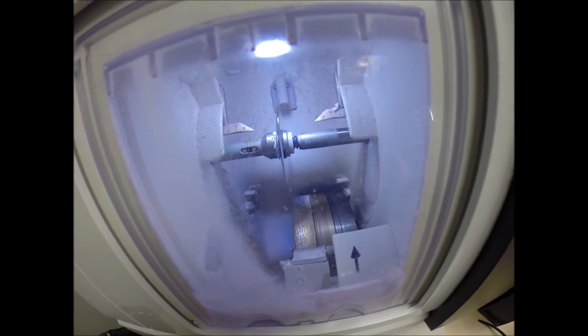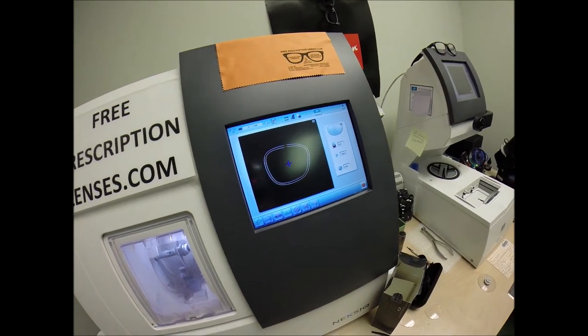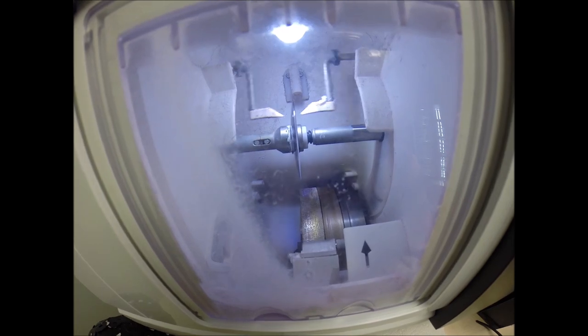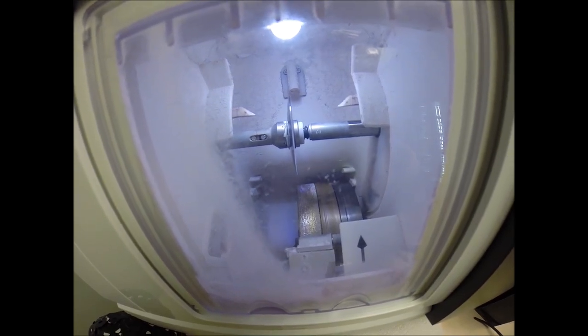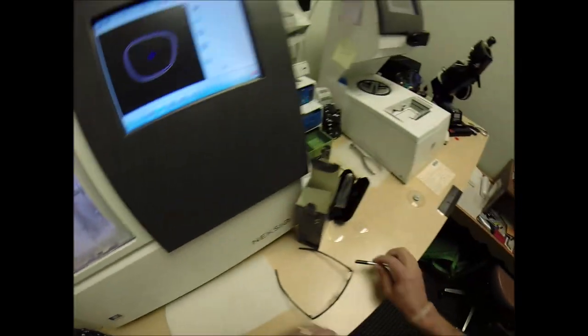And then it's going to be traced by two white styluses, making sure that it's large enough at first to fit into the frame. And you can see it's going around tracing the shape. And then the old carpenter is saying, measure twice, cut once. It's measuring the thickness of the lens at every point to know exactly and precisely where to place the bevel so you have the least amount of edge thickness showing, of which you have none.